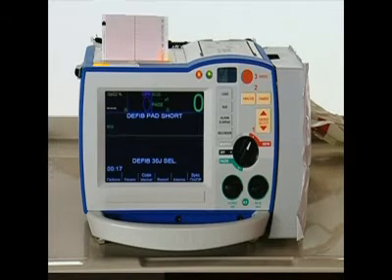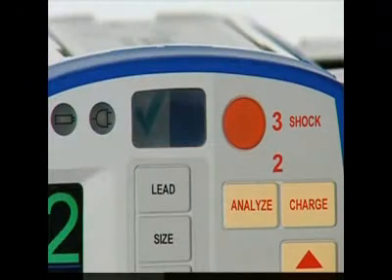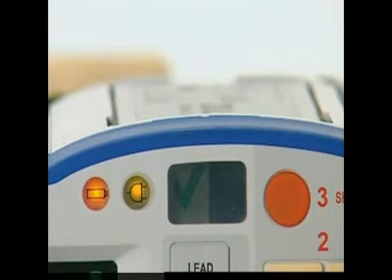The Readiness Dashboard presents several visual indicators that quickly provide the status of the device's readiness for use. In addition to the green readiness indicator, the green AC power LED indicates when the R-Series is plugged in. This light will always be yellow when the device is not in use.